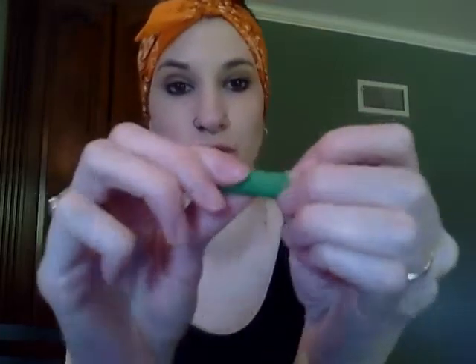I wanted to start off this video by letting you know that I forgot in my last video to mention that something called chewies come in your Invisalign bag when you first get your Invisalign. Chewies are these tiny little green things — they look like miniature pool noodles and are made of the same material. These are for when you put your aligners in; you are supposed to bite on these to seat the aligners. My orthodontist recommends doing it at least 5 minutes a day in addition to each time you place your trays.